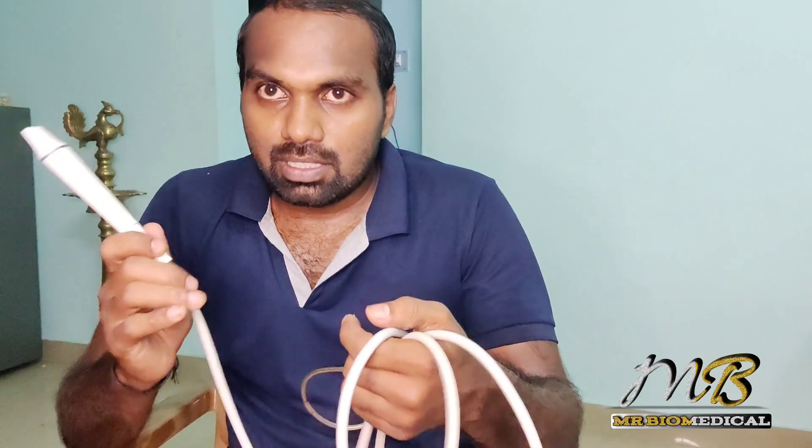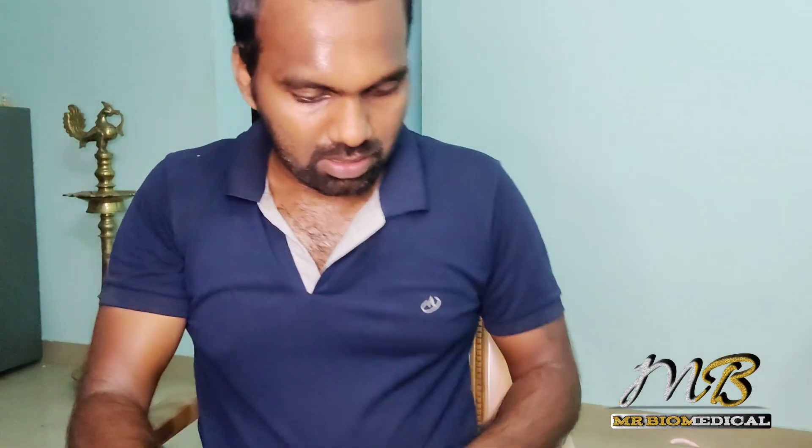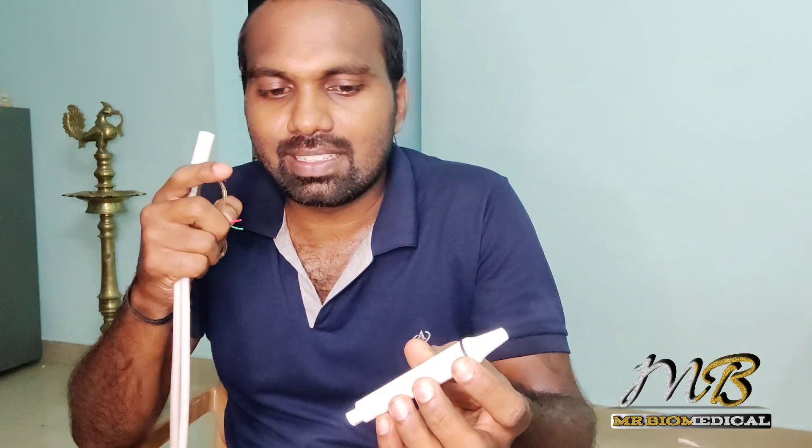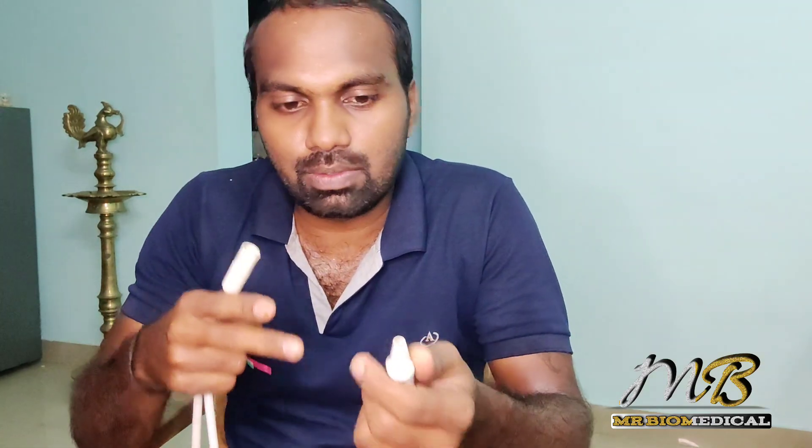This is a faulty one so don't worry about me. This is the handpiece — you can simply remove it. On this side you can see three pins, and two wires activating the ultrasound sensor, ultrasound vibrator I guess. I don't know exactly what's inside but let's crack it open and see.